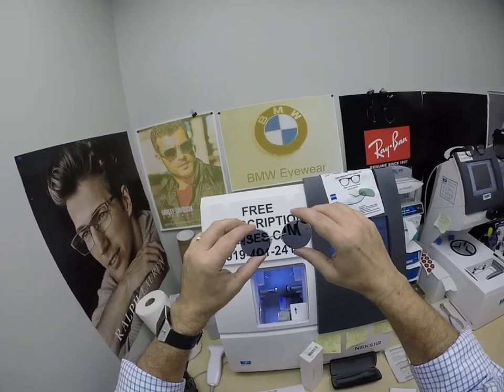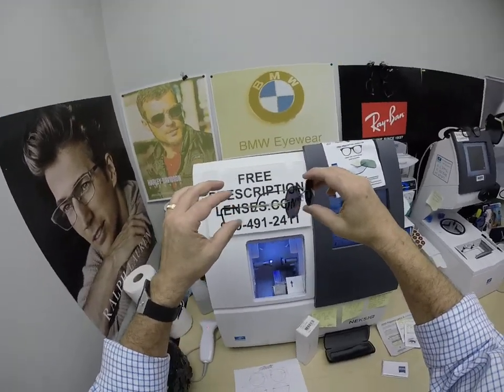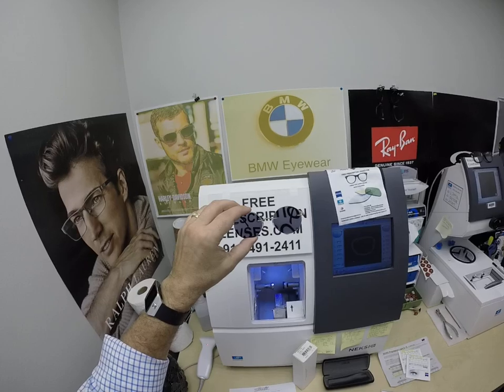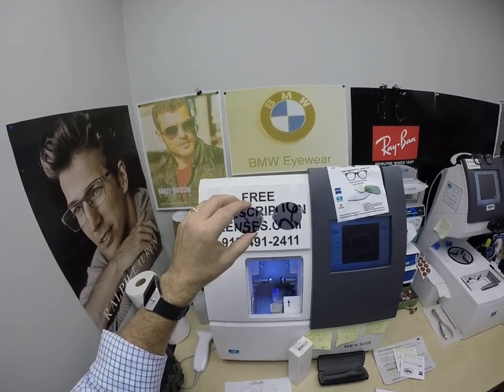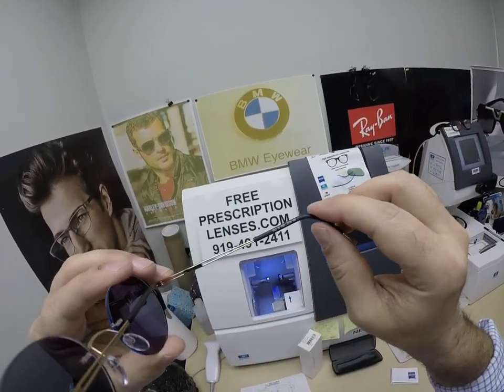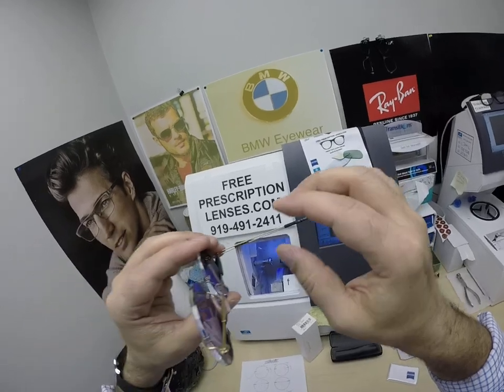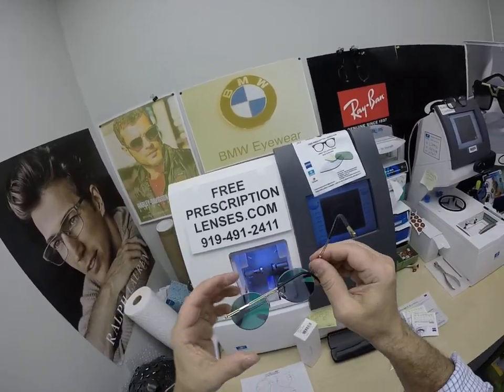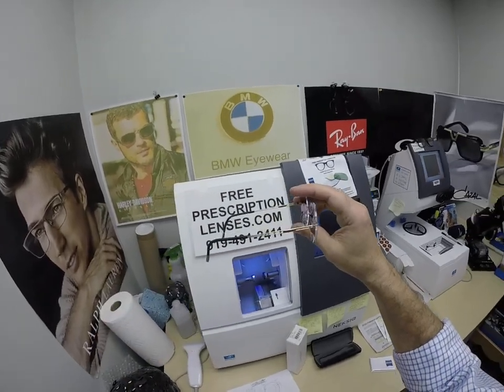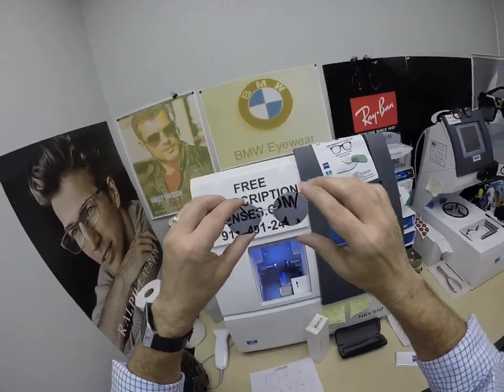Silhouette also makes the memory metal titanium — you'll see a video of one of those in the next 24 hours, and those are getting shipped to Saudi Arabia. There are two types of titanium: the traditional one like this one, and the memory metal that you can twist around your finger and it'll spring back to the original shape. The silhouette information is written on the inside of the temple tip — this one says Made in Austria by Silhouette. This is the Austrian titanium.